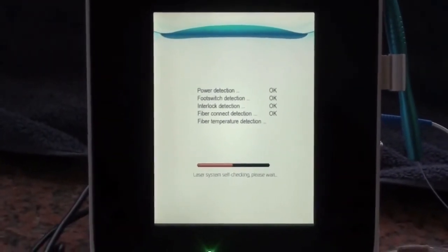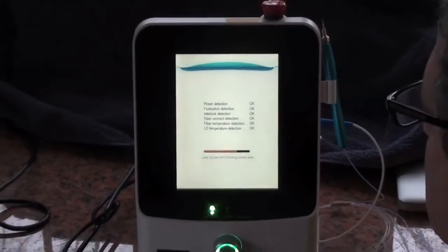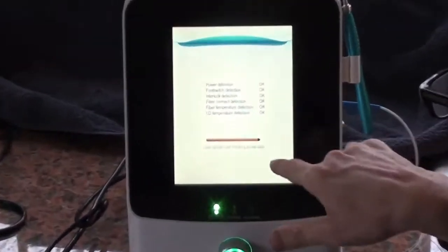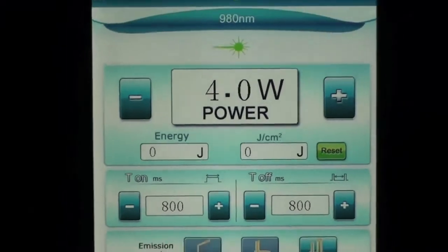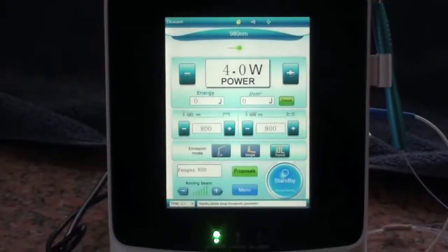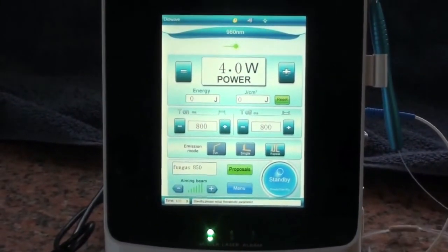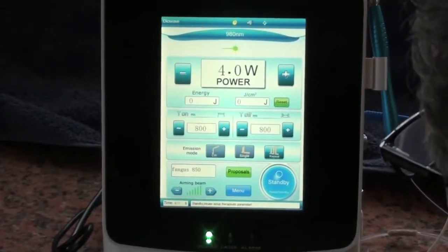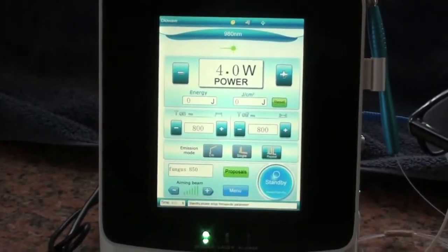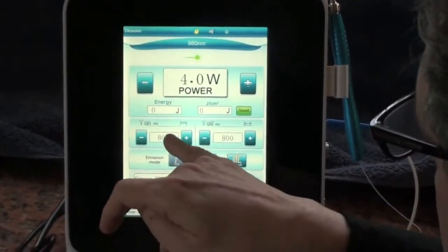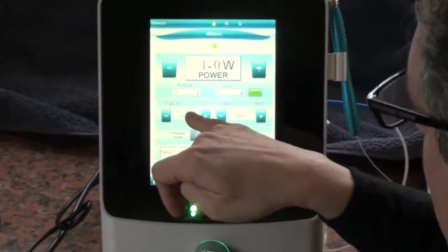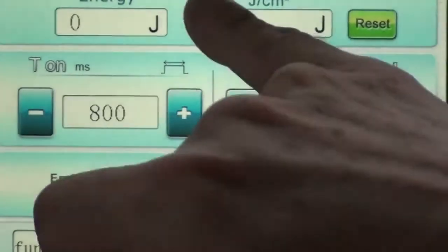It will go through a self-diagnostic screen. The power detection says okay, the foot switch detection, everything says okay. So we're going through a full self-testing diagnostic feature. Right now it's in a standby mode. It's set for one of our protocols, the fungus toenails, 800 on. That's time on or pulse width, 800 off at four watts.